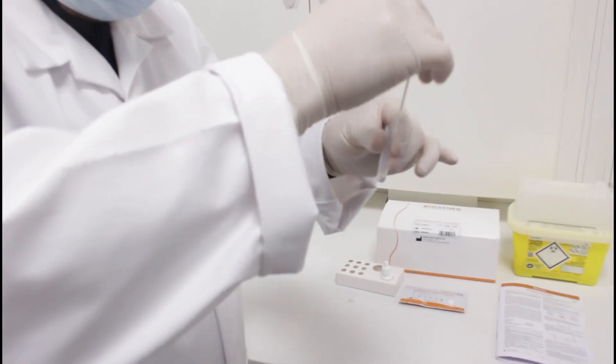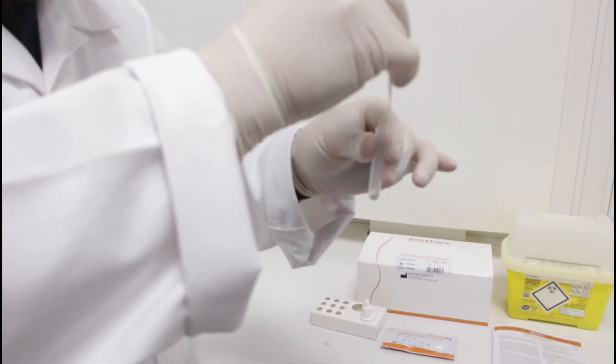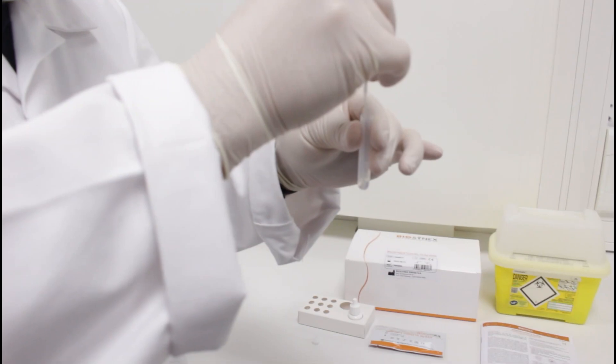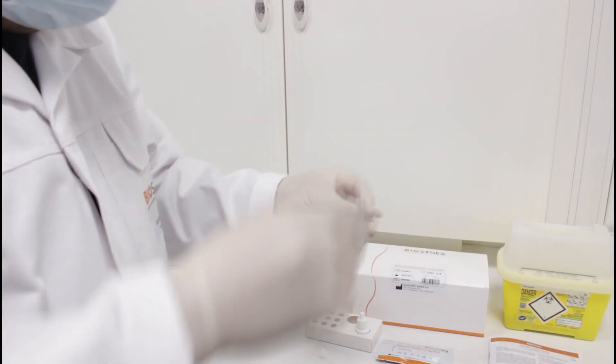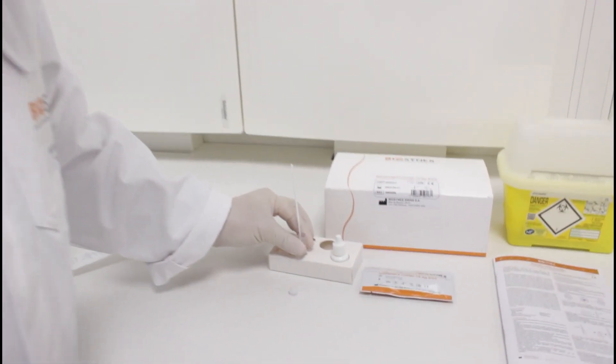Then take the swab and discharge it in the extraction tube. Turn it 6 times to extract the sample and then let it rest for 1 minute.